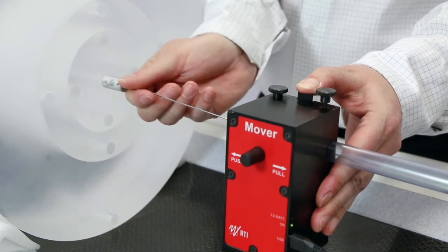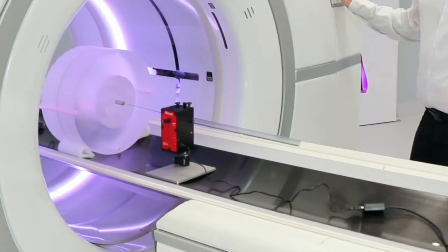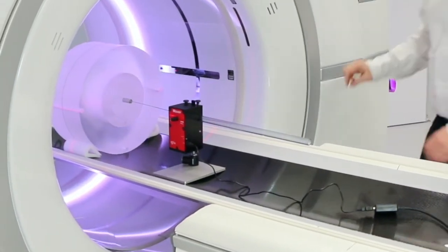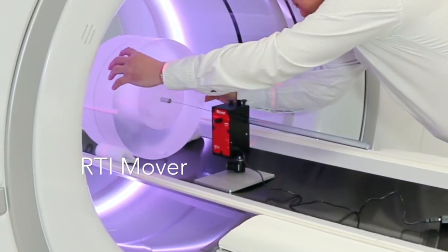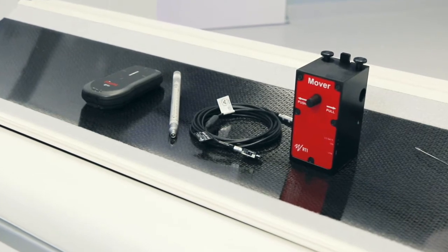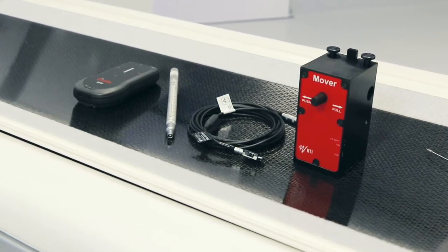The mover is used in situations when no CT table movement is possible or desirable. We will measure in a CT-DI Phantom using the mover, CT dose profiler probe, the Piranha and the Ocean software.